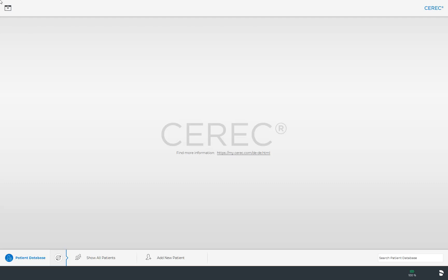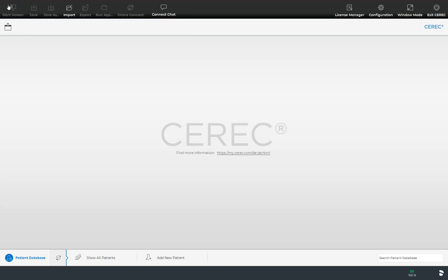Right now we are on the start screen and you tap the button on the top left to open the system menu. Now all submenus are displayed.